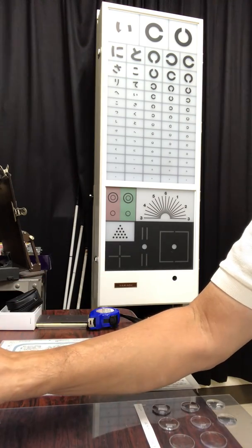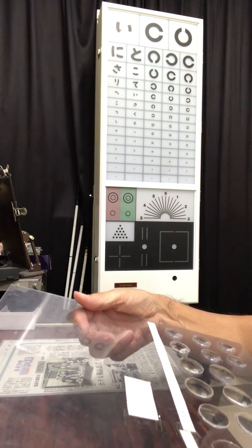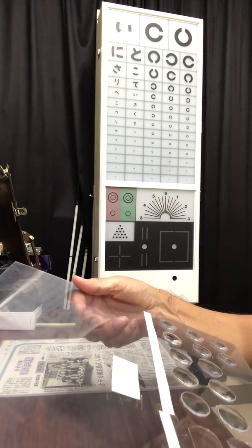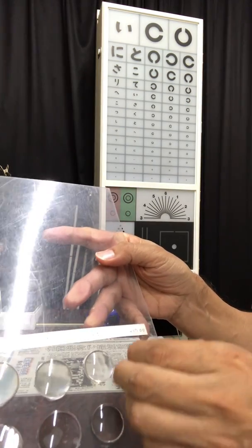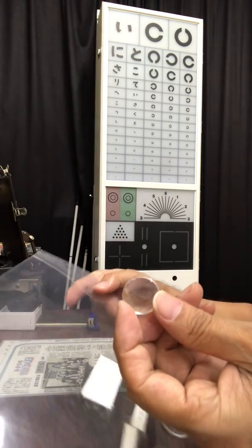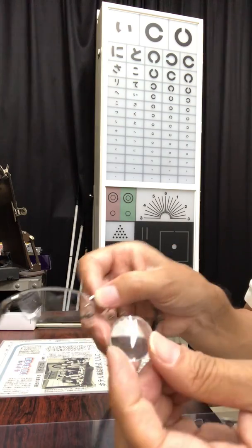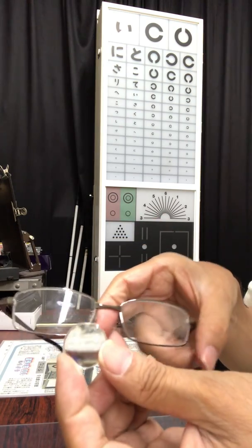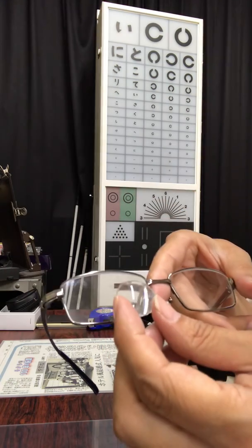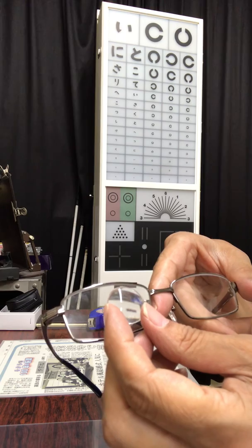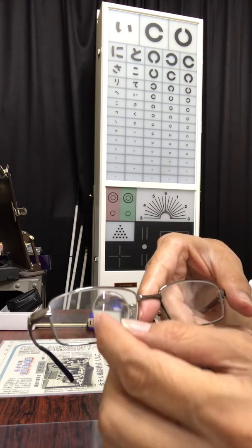And then I want to make a simple lens eyeglass to enlarge. I want to use 17 diopter simple lens. Now, I attach the simple lens to the frame of eyeglass according to the pupil distance of the patient. It is very easy to attach without water.